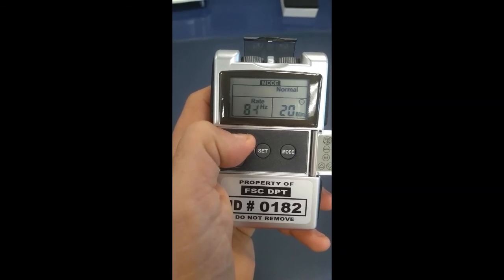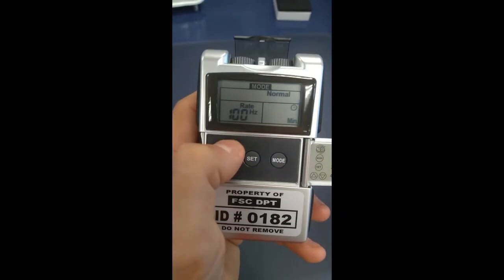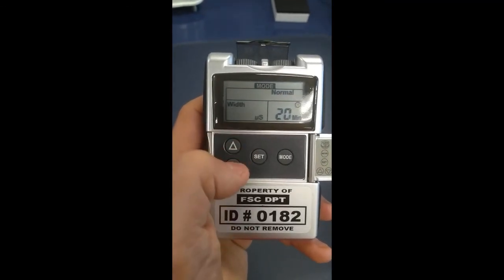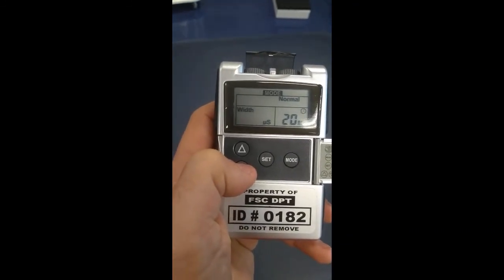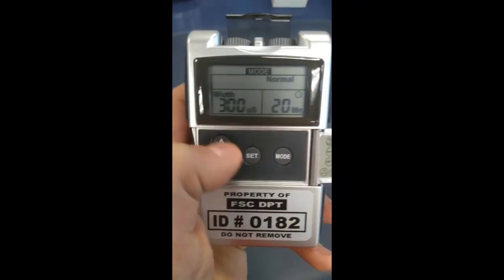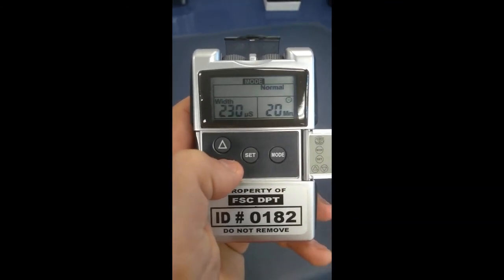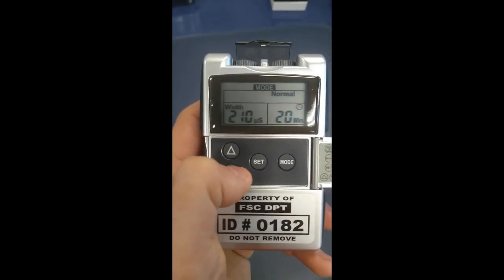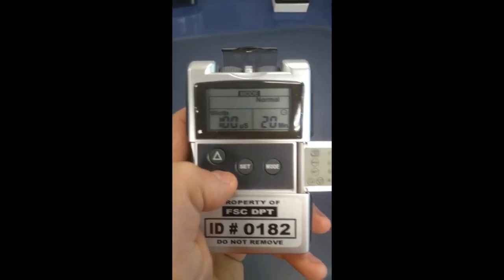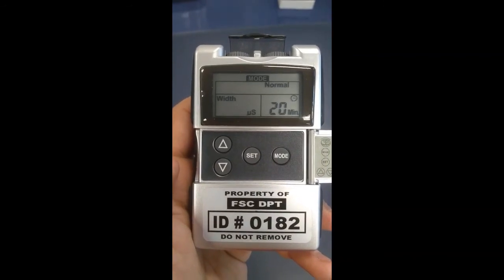You can set the time — 20 is generally a good setting. Then you can set the pulse width in microseconds. The maximum this machine does is 300 microseconds. The lower you go on pulse width, the less likely it is to recruit pain fibers or motor fibers — going too low means you'll only recruit sensory-type fibers, which can be more comfortable. The lowest setting is 50 microseconds, which is considered a very narrow pulse width.